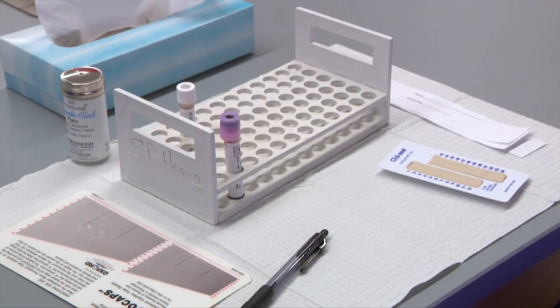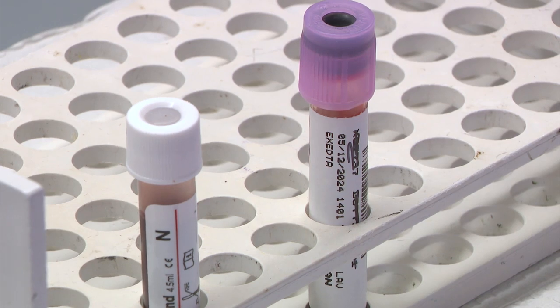The spun hematocrit measures the volume of packed red cells in a given volume of whole blood. This method uses EDTA anticoagulated whole blood or capillary blood obtained by finger stick. In this video we will be performing this test on a control sample and a patient sample.